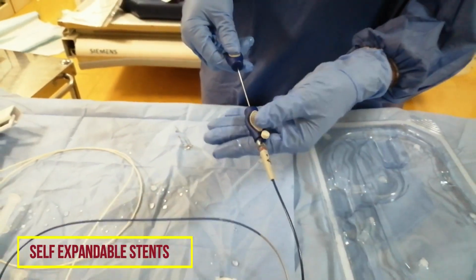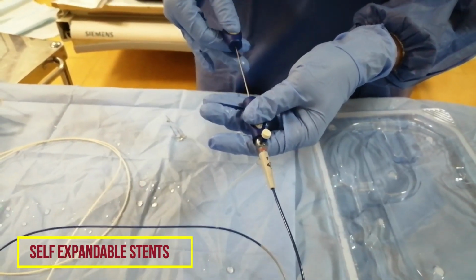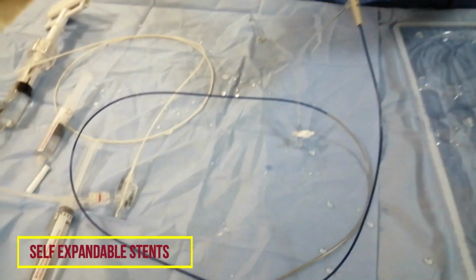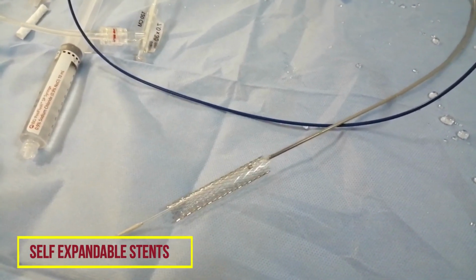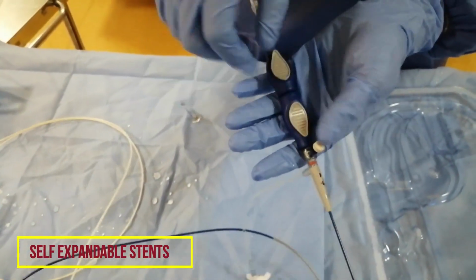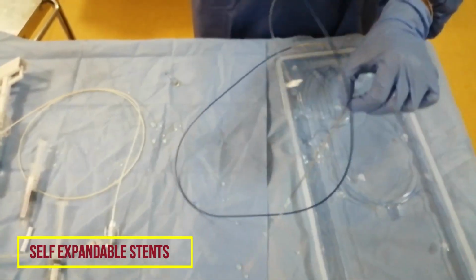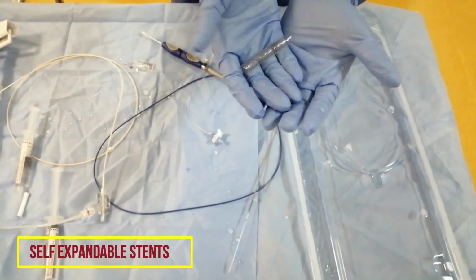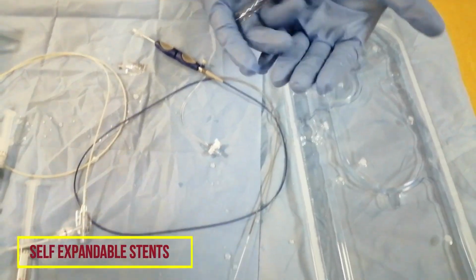Very simple. You hold this one in your hand, the left hand if you are dominant, and you push the other part. Now you can see how the stent is deploying. The stent is deployed. Clear? After you go completely, you can see these two parts are close together. You will remove this system over the wire. Now your stent is deployed in the blood vessel. You can see this is an uncovered vascular peripheral stent inside the blood vessel.